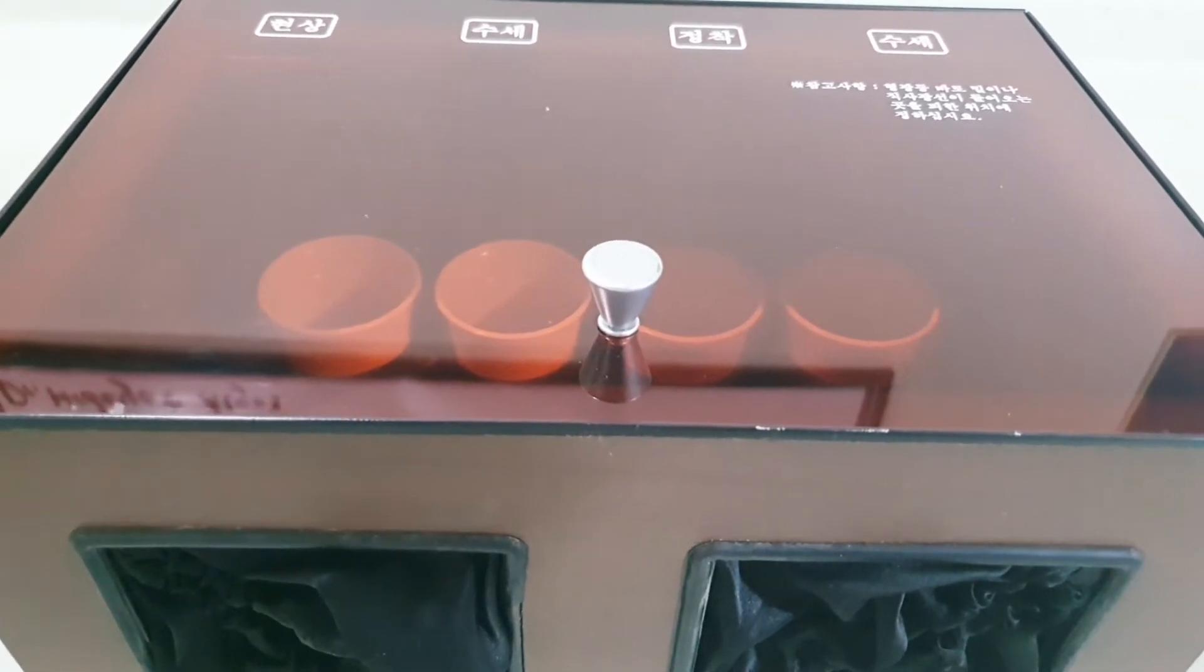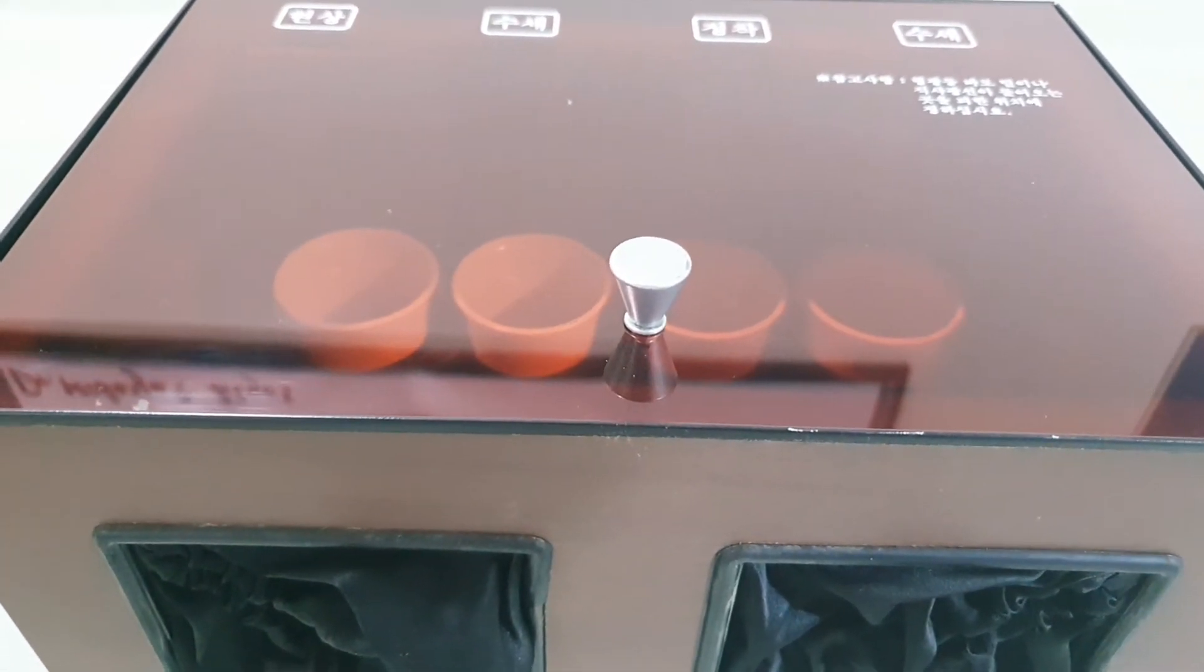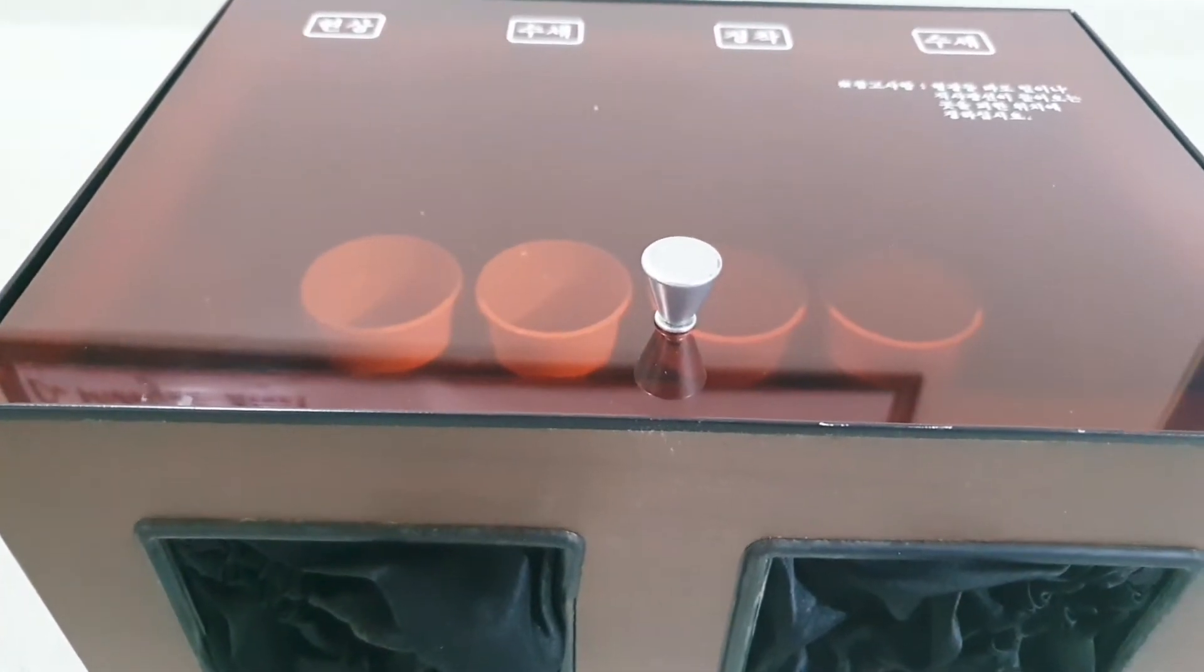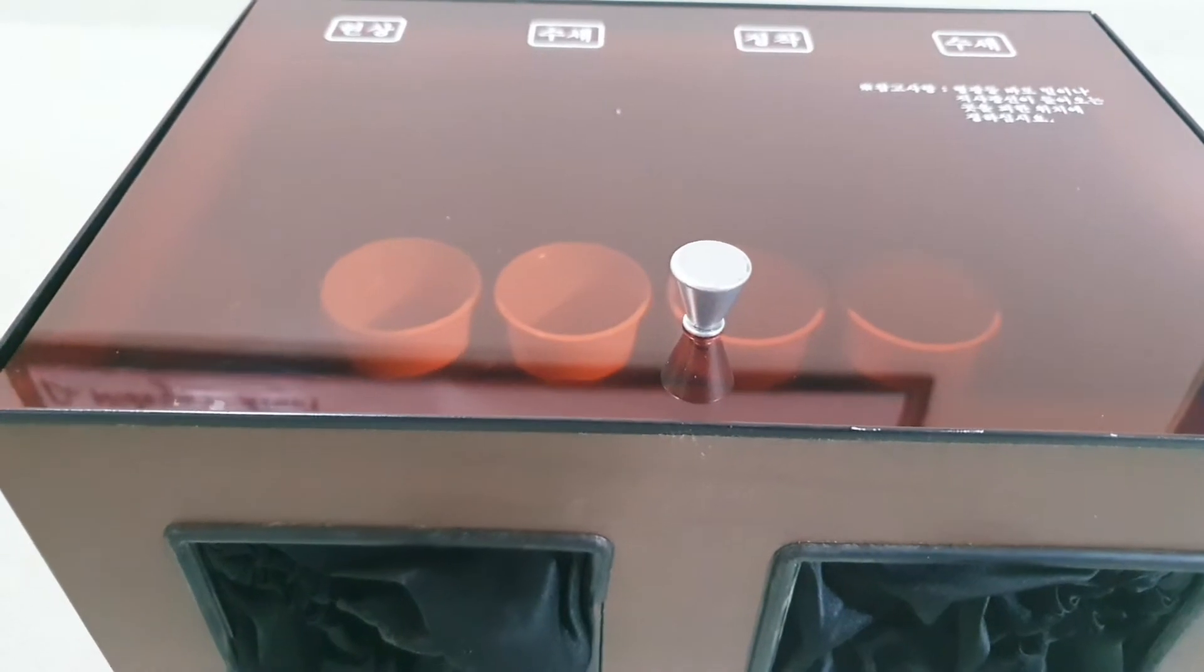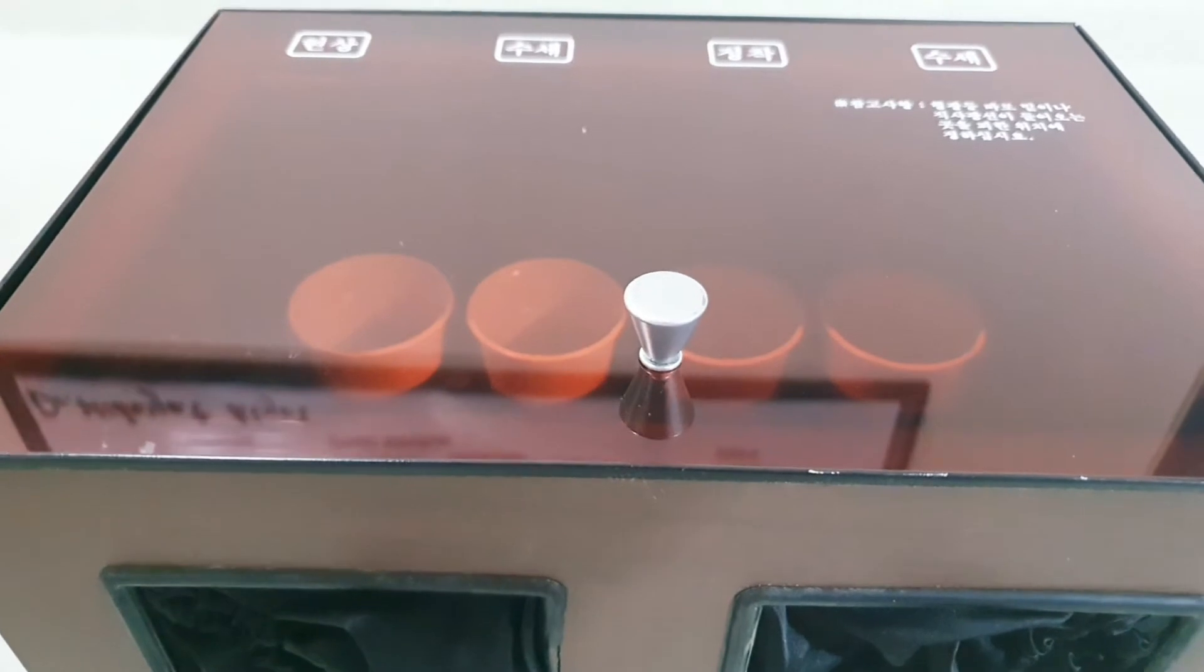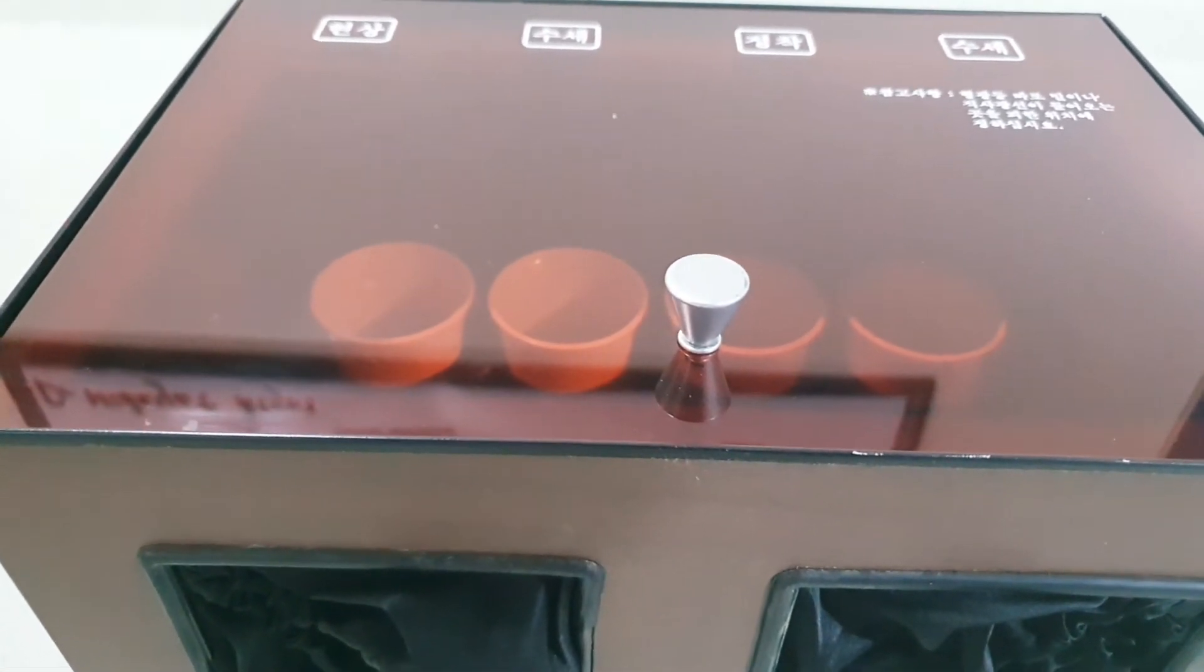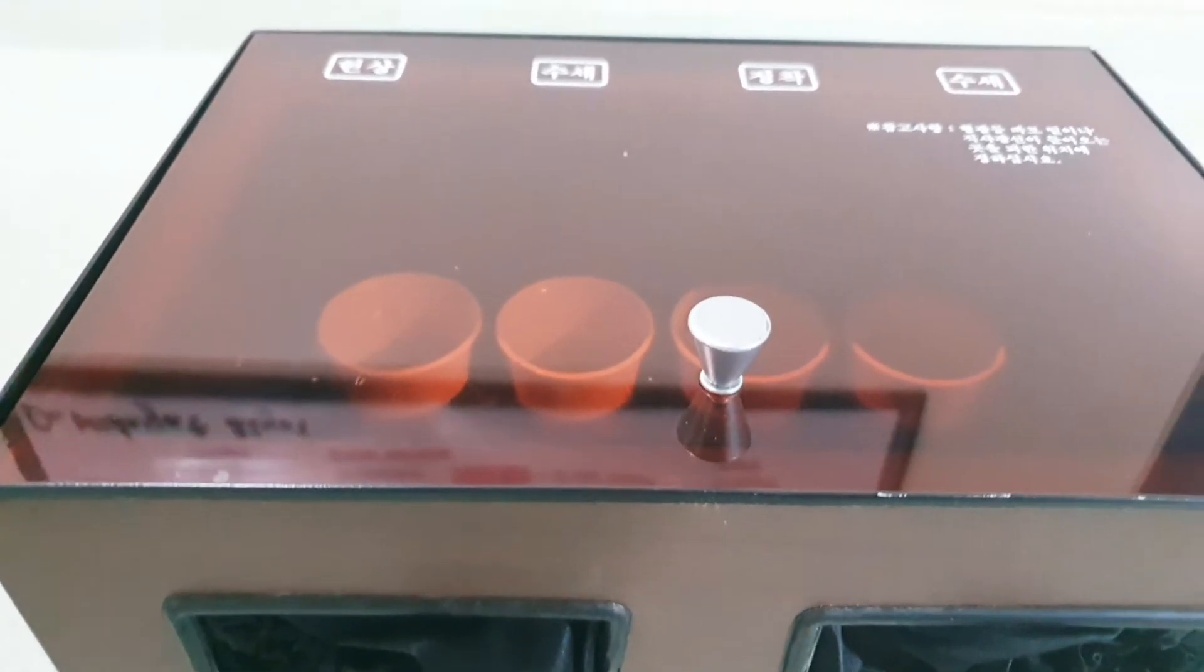The first compartment contains the developing solution, the second is for rinsing with water, the third is for fixing, and the fourth is for washing.